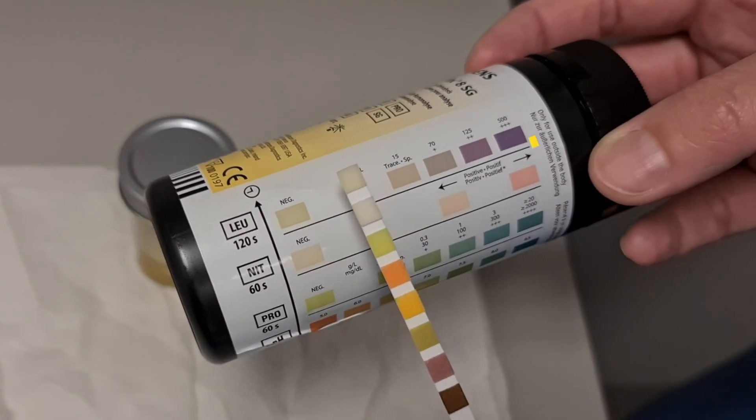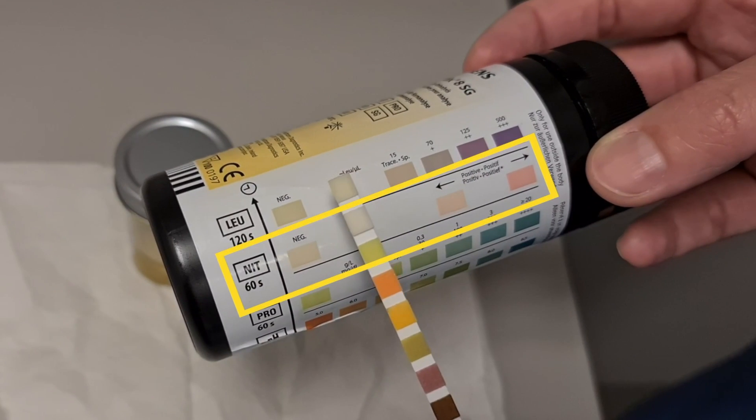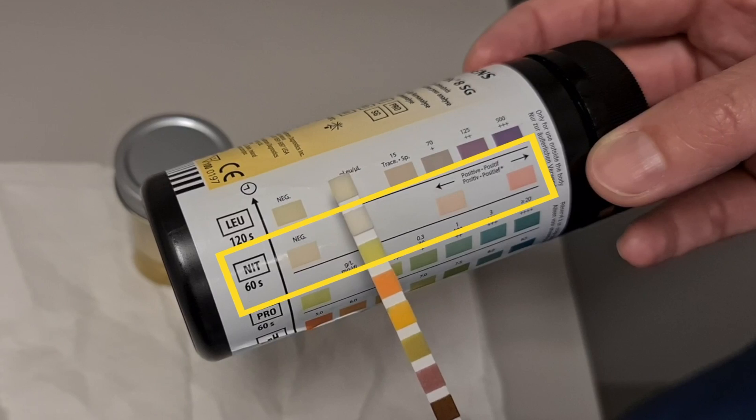Nitrites. Nitrites are the breakdown product of some bacteria such as E. coli. If you've got nitrites present, that's a pretty good sign that there's a urinary tract infection, but actually they are not very sensitive, so their absence doesn't mean that you don't have a urinary tract infection. The longer the urine has been in the bladder, the more likely you are to get nitrites in the presence of infection.